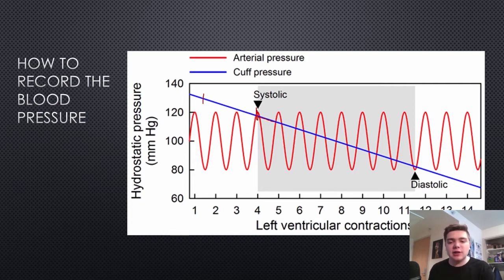Then, as it continues and the pressure goes down, it reaches the last time that the diastolic pressure registers a difference on the sensor. This way, the computer knows this is the diastolic pressure — the lowest pressure.